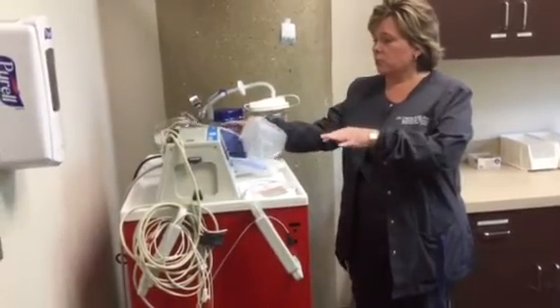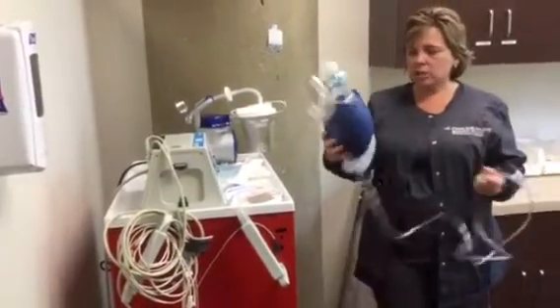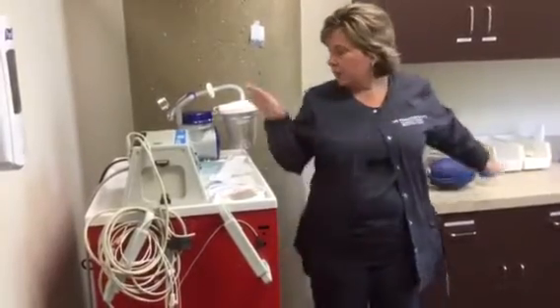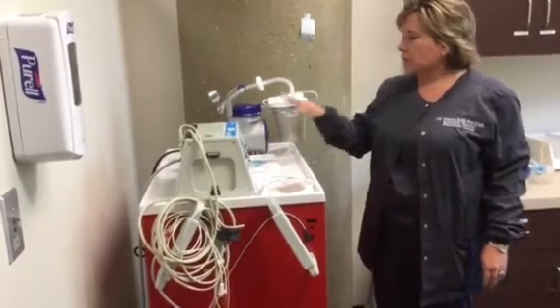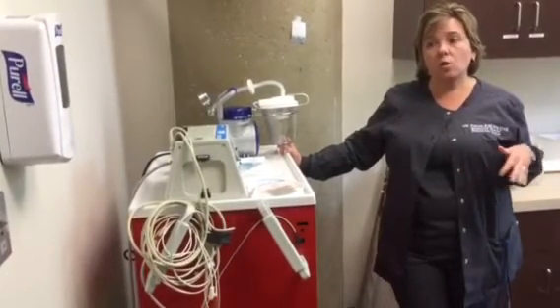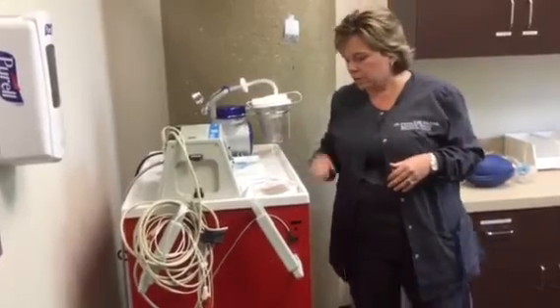On the crash cart, other than the defibrillator, we do have an ambu bag that has an oxygen connection. So if you're in a room with an oxygen connection, you would plug this in and then utilize this for giving breaths. And we also have a portable suction machine with your tubing and your Yankauer suction. This can be used in case you're not in a hospital room, maybe you're in a restroom or a hallway or outdoors where there's not central suction. And so you'll have that, but you do have to have power for both of these to work.